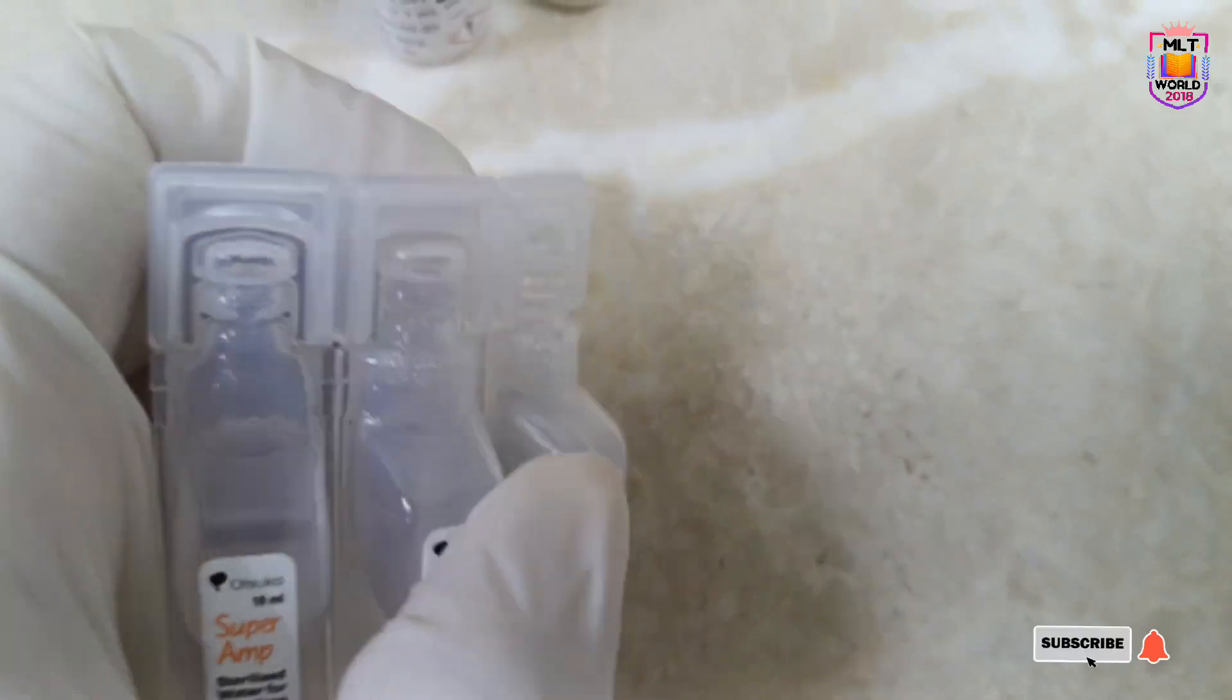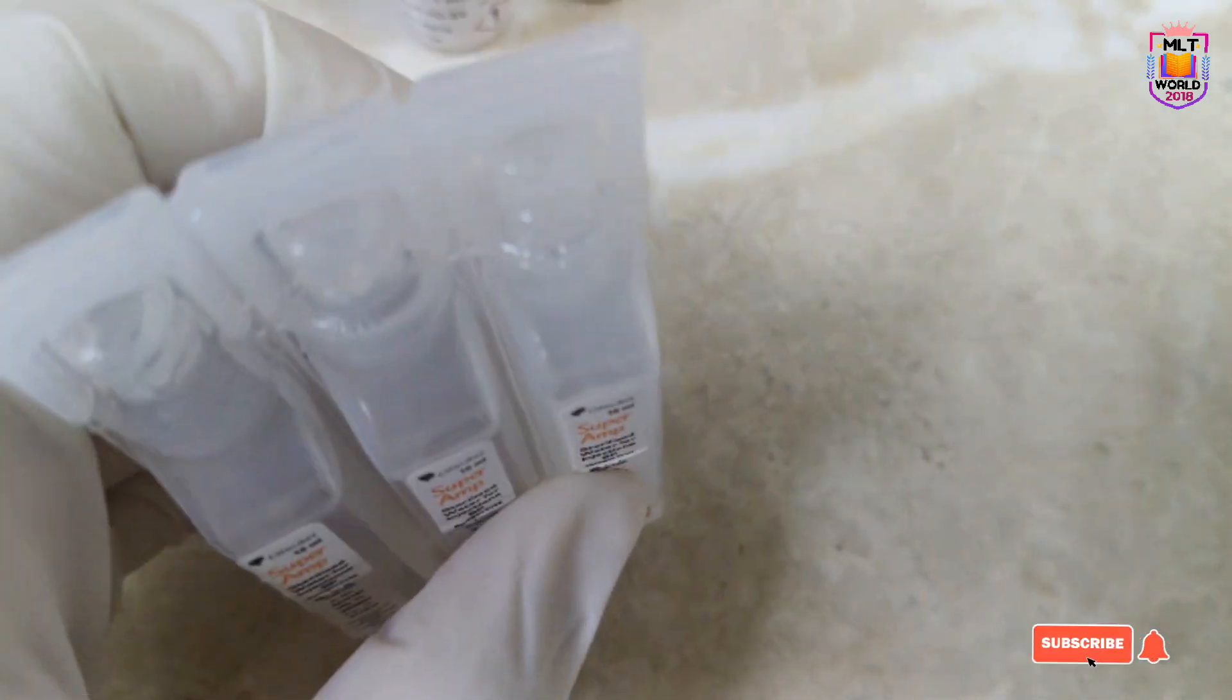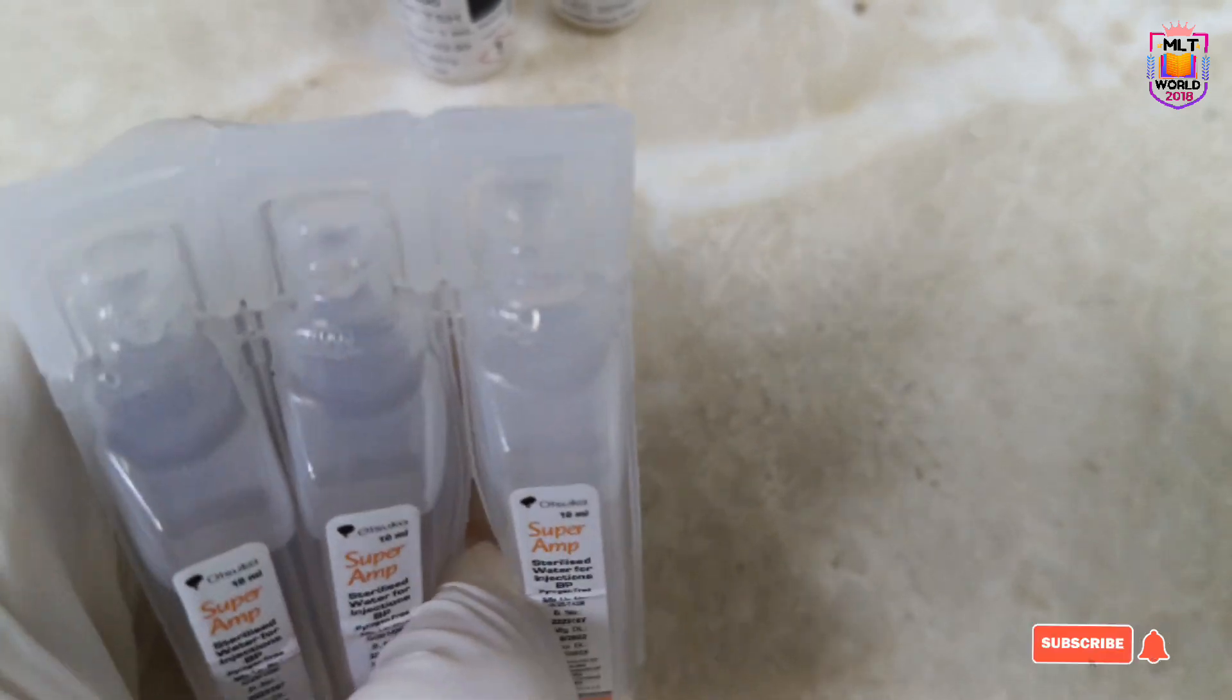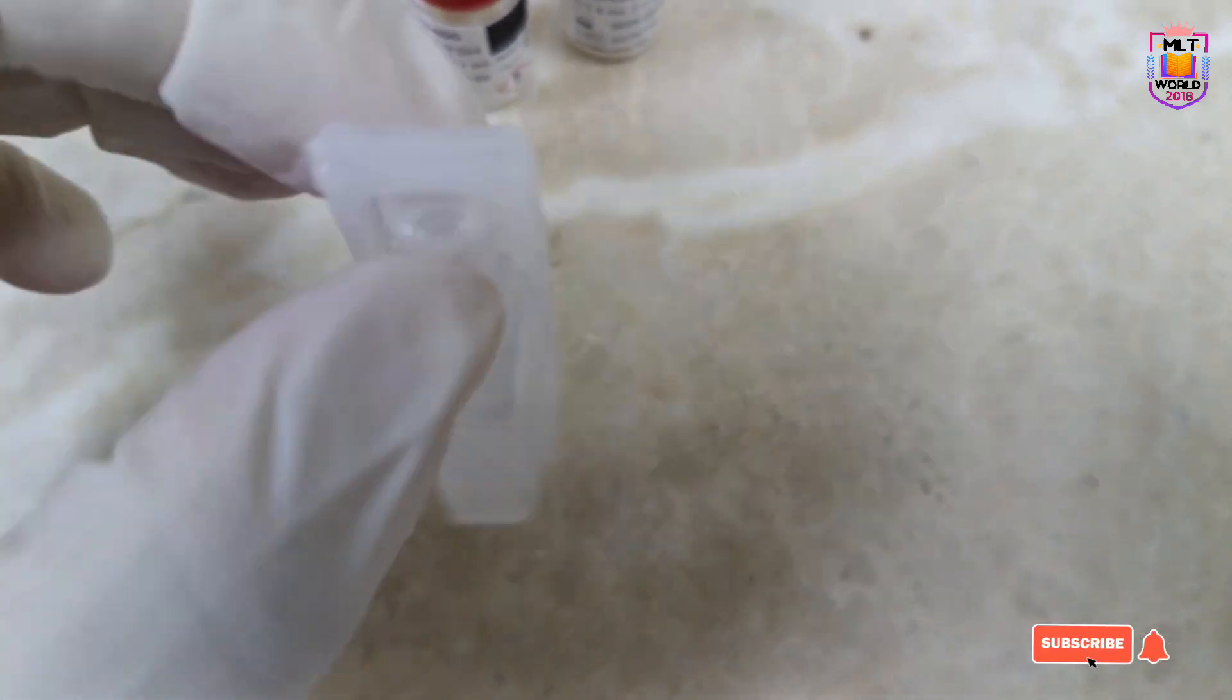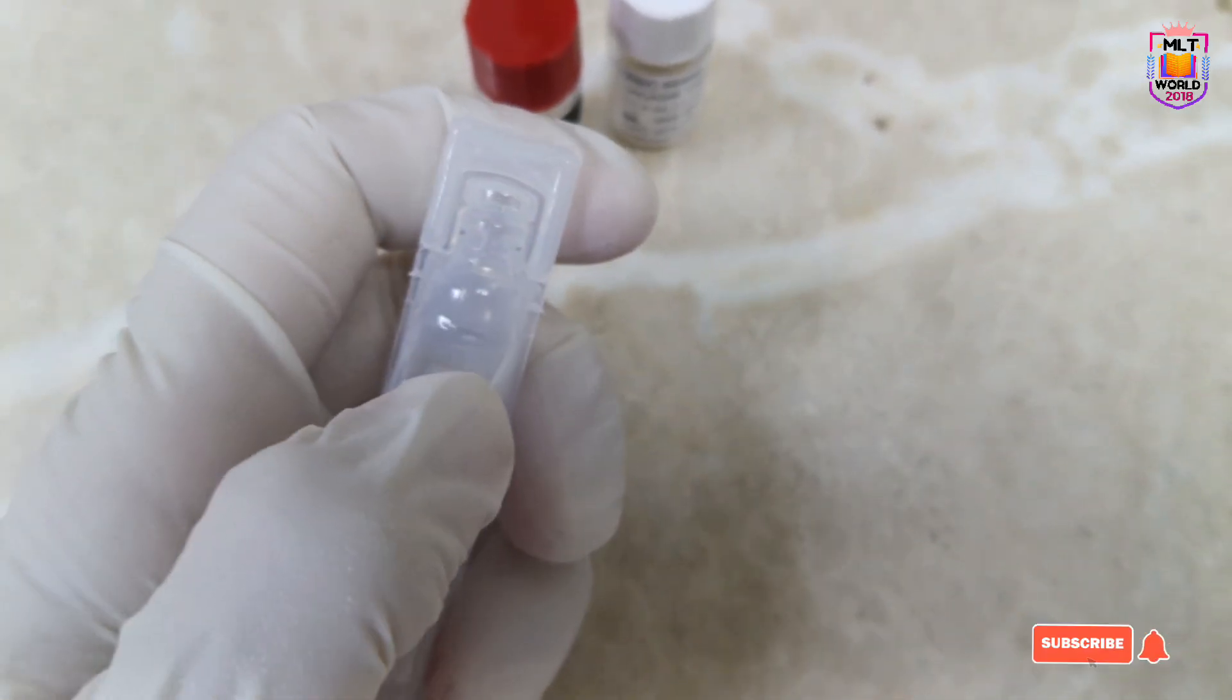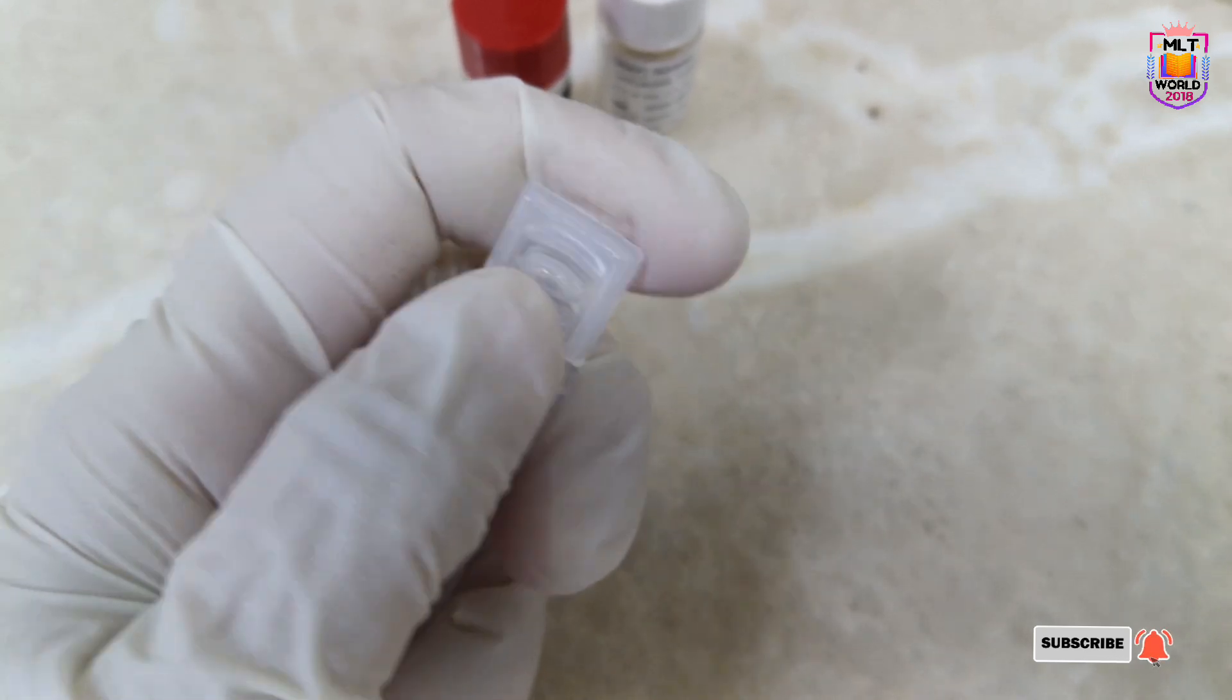We will not take water directly from the injection. First we will dispense this injection water into a centrifuge tube for correct pipetting. Otherwise your pipetting will not be accurate, and if dilution is not accurate, your calibration will not be completed.